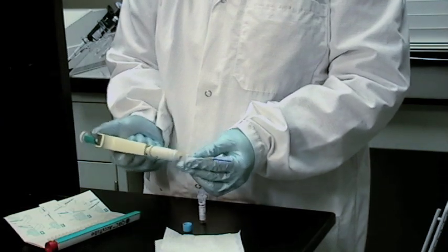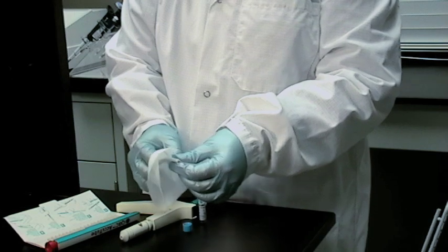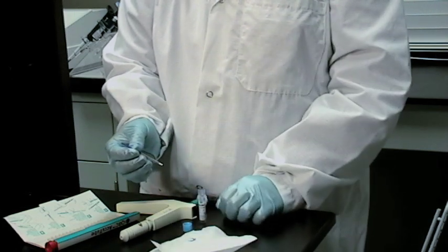After taking the tube from the vial, remove it from the pipetter and wipe the Accutube down. Be careful not to wick any of the control out of the Accutube.